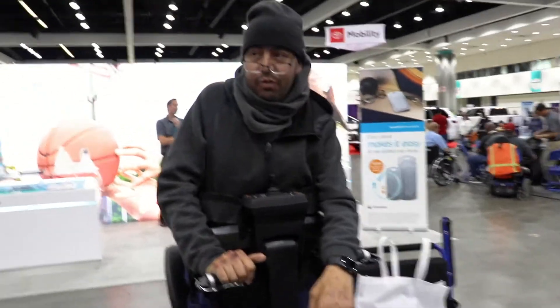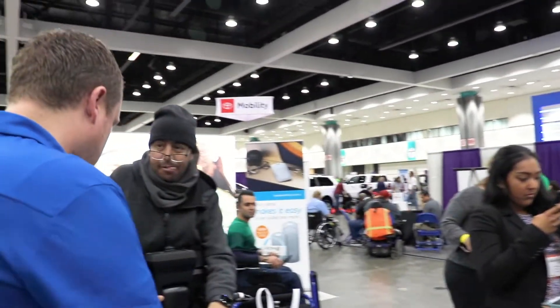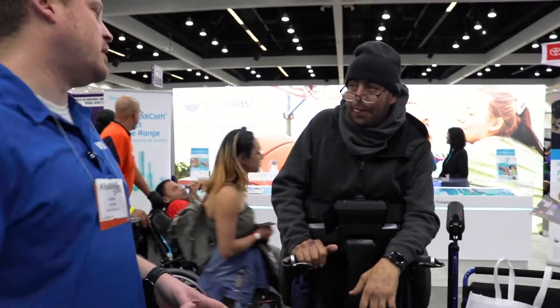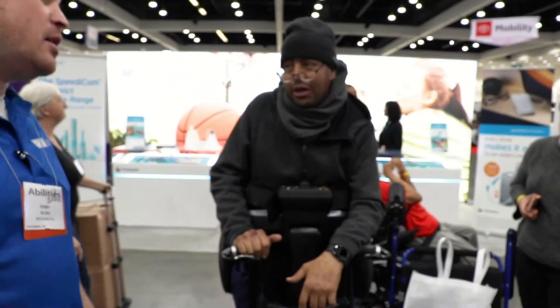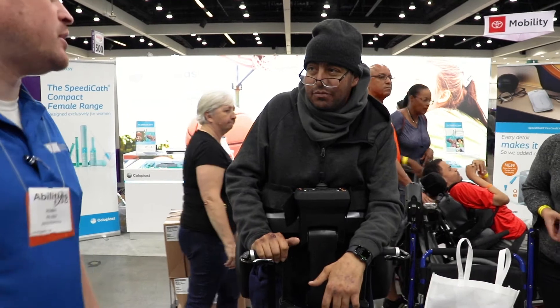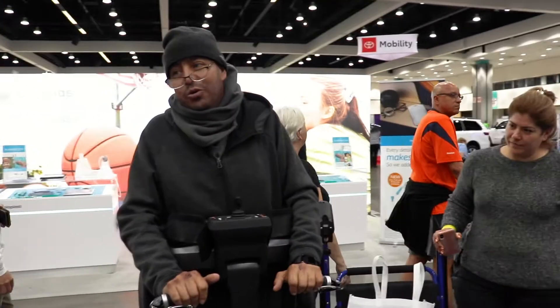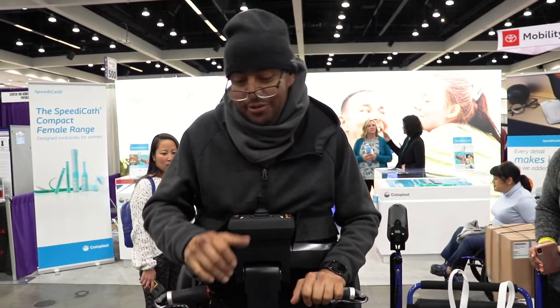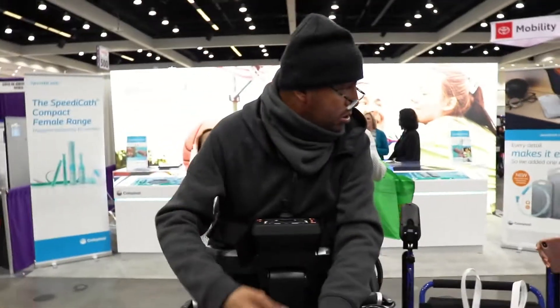It's not really easy to flip over, right? No — like if you go up and push him, the weight's all in the bottom. The machine itself weighs about 260 pounds, so it would be really hard to tip it over. I'm not saying you couldn't if you tried. You just gotta be gentle. But if you're just reaching for something, you're not going to tip it. You can move around quite a bit and still feel really stable. I even try to cook. Yeah, there are people that are cooking in it.